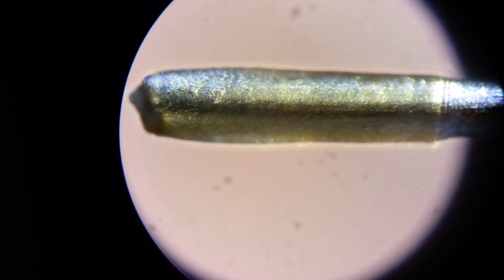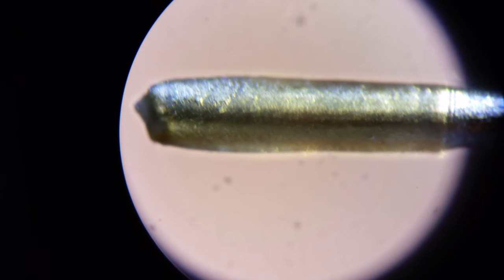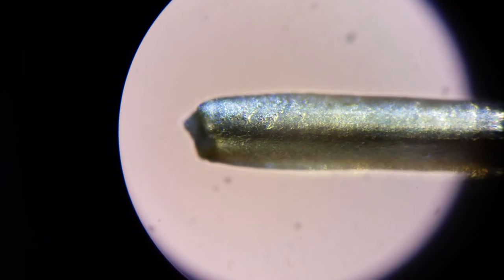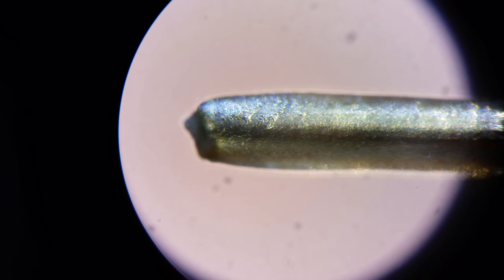So this covering on the end is some substance. I'm sure it's really well kept secret, but maybe not. That basically reacts with the glucose in your system, creates chemicals that turn into electrons that the sensor then can read.